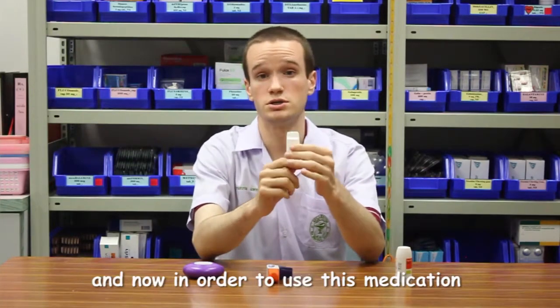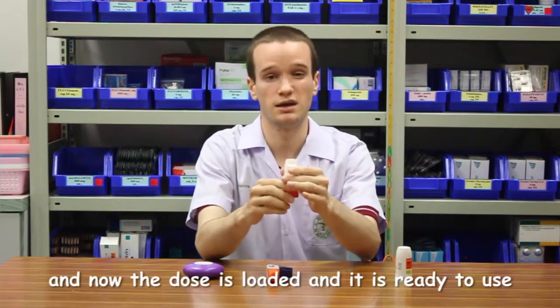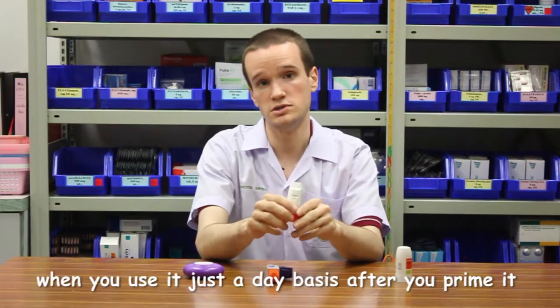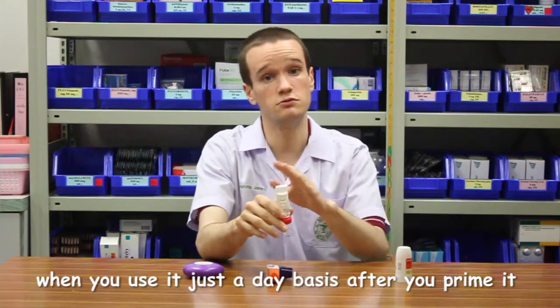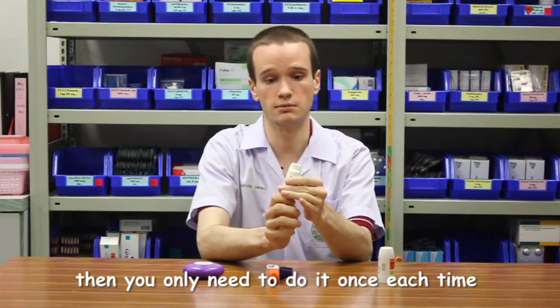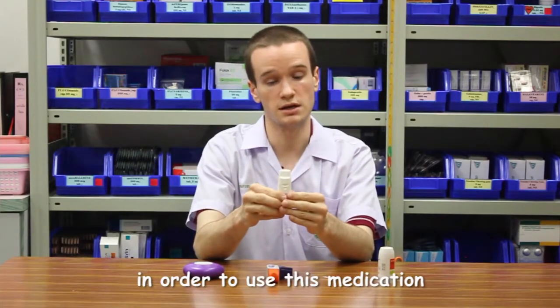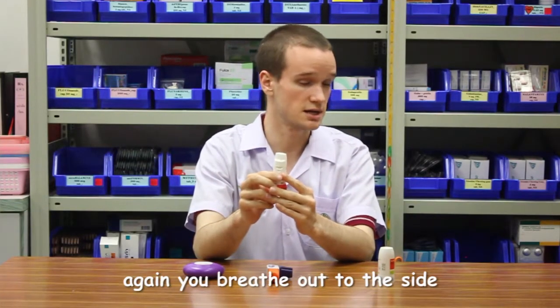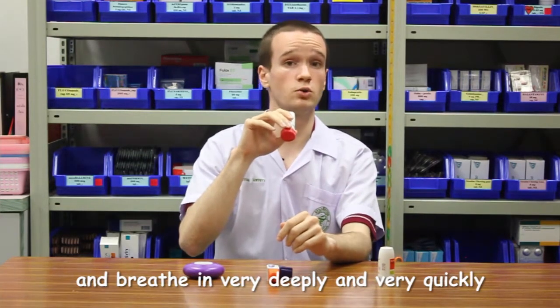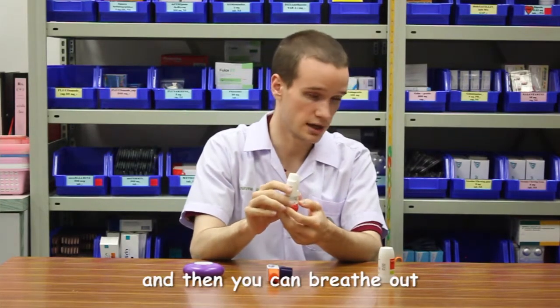So now in order to use the medication, you need to twist it one more time. And now the dose is loaded and it is ready to use. When you're using this just on a day-to-day basis, after you've primed it for the first time, then you only need to do it once each time in order to load the next dose. Now, in order to use this medication, again, you breathe out to the side, bring it up to your mouth, and breathe in very deeply and very quickly. Hold your breath for 10 seconds, and then you can breathe out.